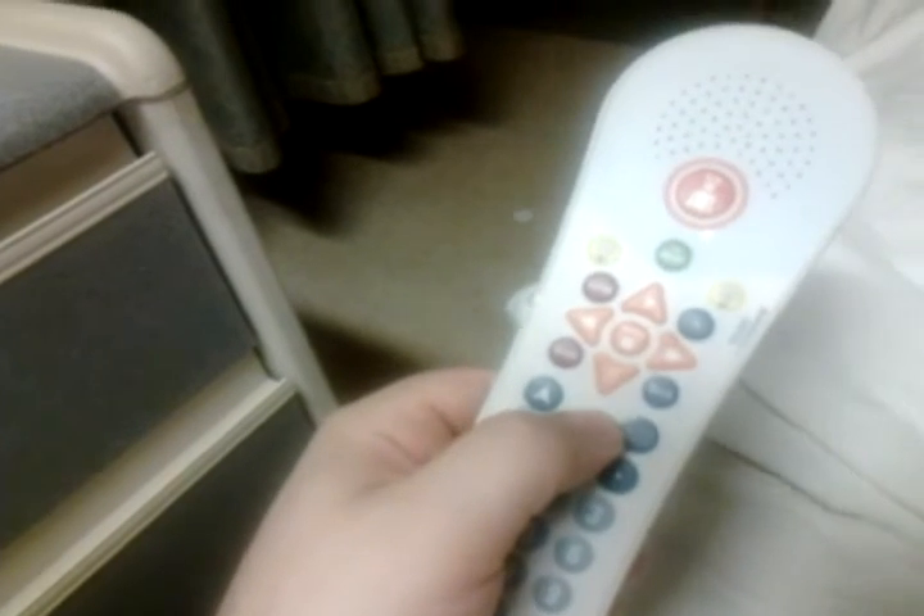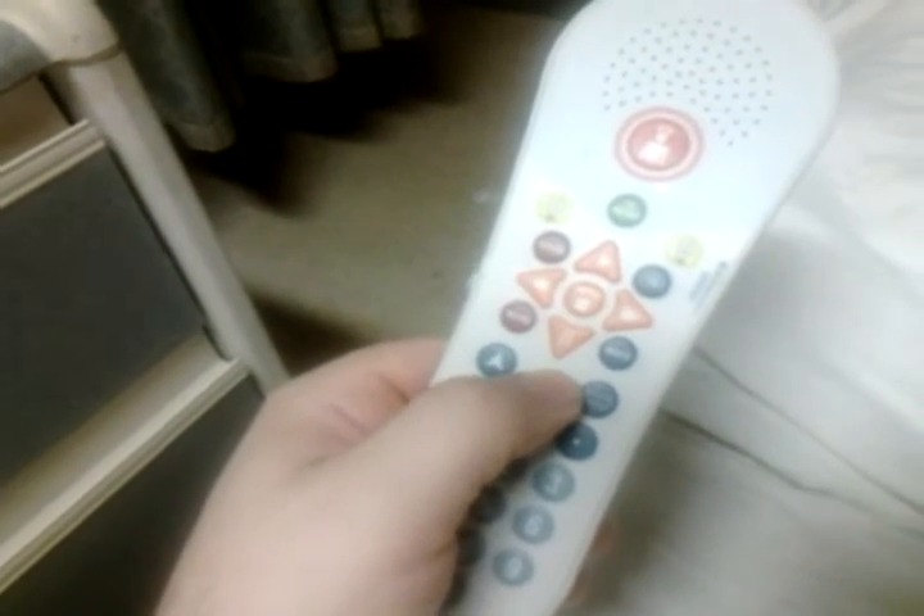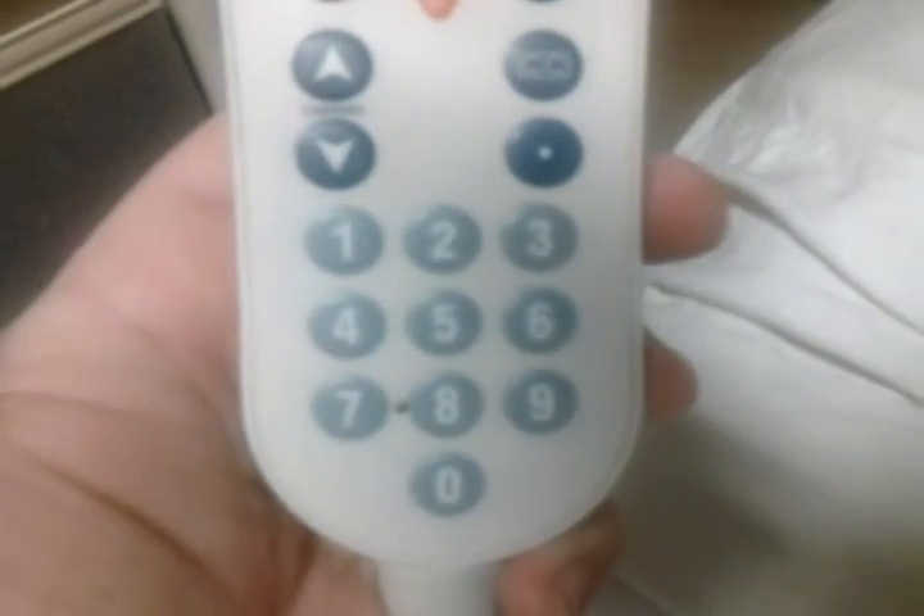This will do the call bell, the lights in the room, and the TV — and that's really all I've played with it for. My remote comes with this black speck by the 7 and 8; I don't know what that's really about, if it's just a dimple in it or what. But this is the only remote I've ever had, so that's that.